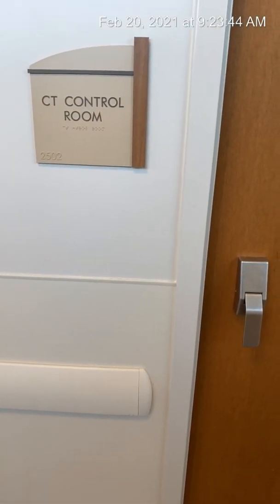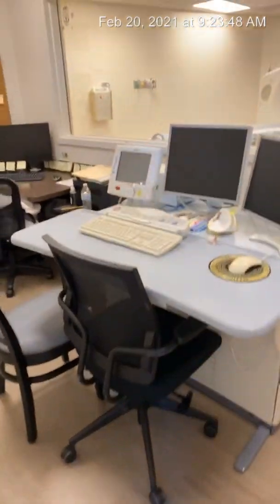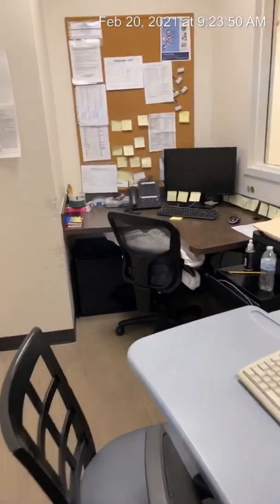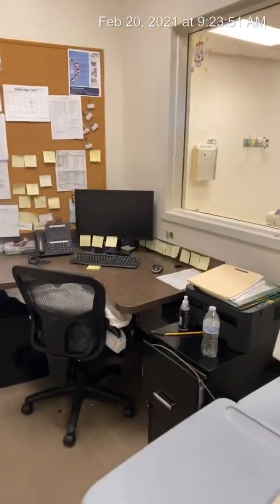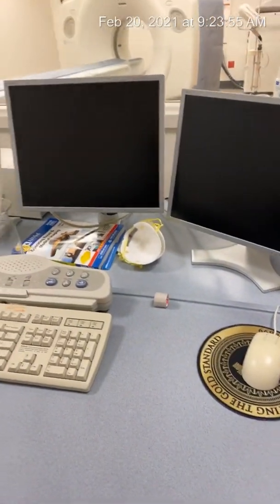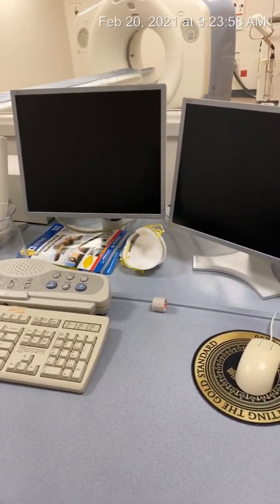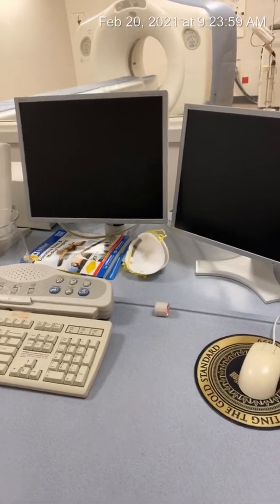So here I want to show you what's inside a CT room. So you walk in and just like any place you have your CT. This is for people that don't know much about CT. So what's up guys, I'm going to take my mask off. This is more about people that don't know much about CT and what they're getting into.